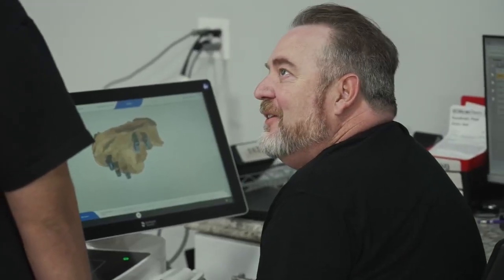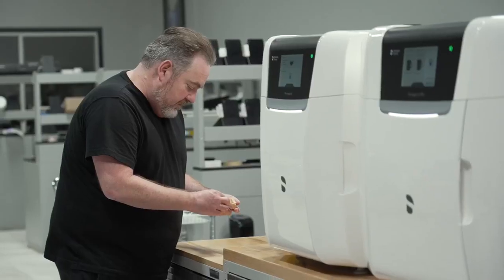Eventually I bought my first printer — a big industrial printer — and all it did all day was make models, and that was basically my intro into printing. I saw it being a lot more efficient and faster, and all I kept thinking about was how many different materials are going to hit the market so that we can really take it to another level when it came to printing.